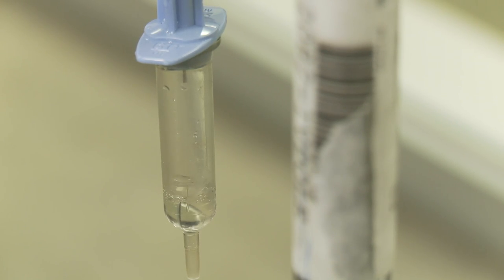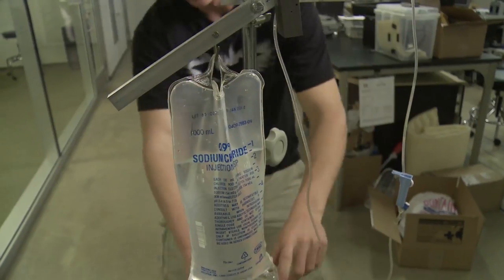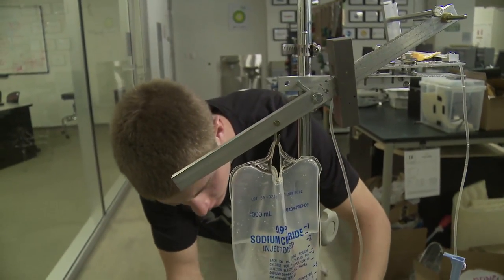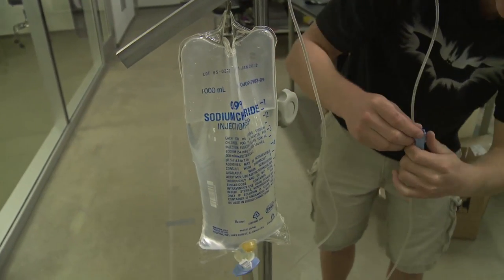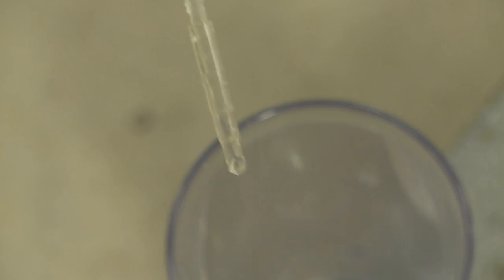What we needed to do was to create a device which would autonomously regulate the flow of fluid to a child and shut off fluid after a certain point.